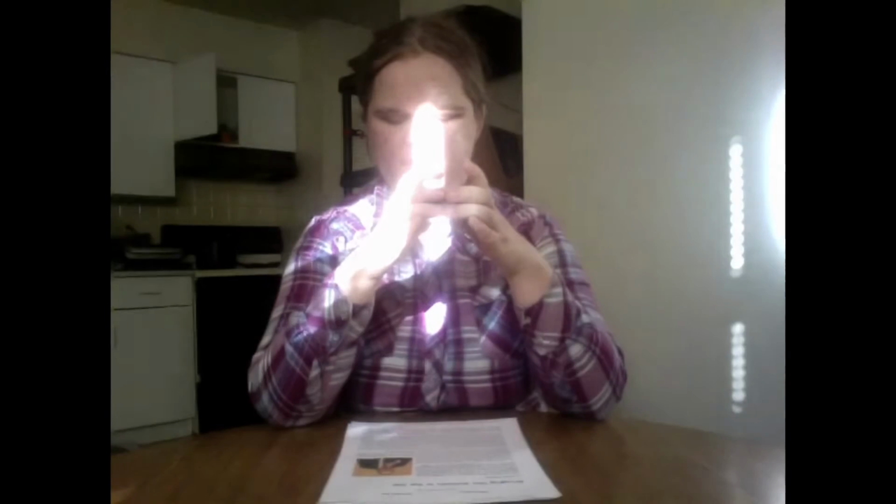So if I make minor adjustments for that tilt and to try and bring that left edge into focus, I'll go ahead and take another field of view report. Field of view. All 4 edges are visible, rotated 2 degrees clockwise. Make a little bit more of an adjustment for the tilt. And now we're ready to take a picture.